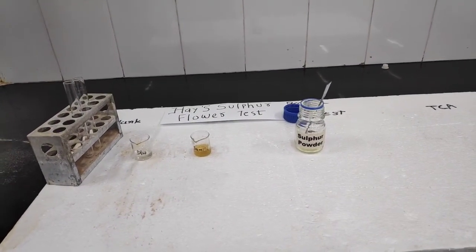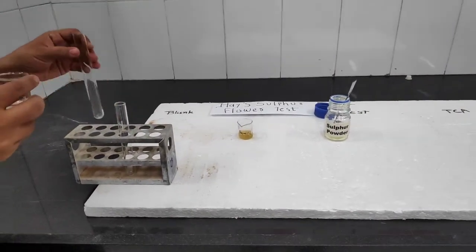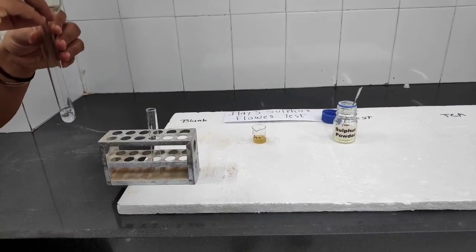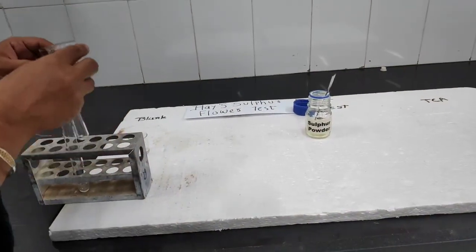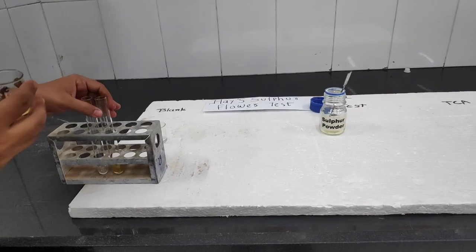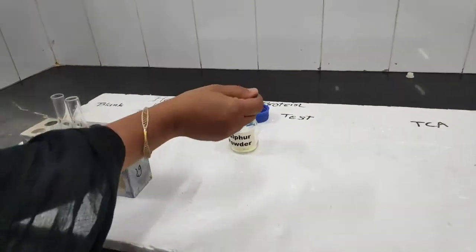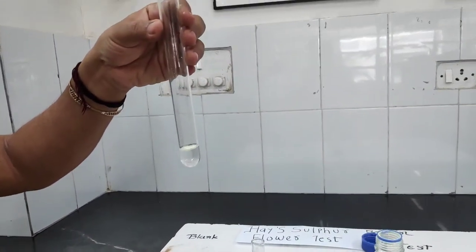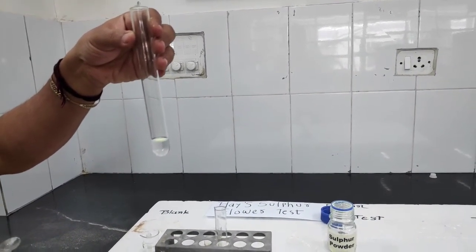Let's see the procedure. In the first test tube, take around 3 ml of distilled water — that is for the control test. In the second test tube, take around 3 ml of the given urine sample. Now we will add a pinch of sulfur powder to the distilled water test tube. As you can see, the sulfur powder is floating on top, which means there is an absence of bile salts.